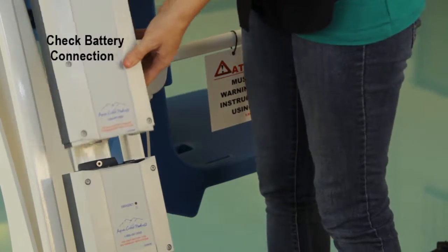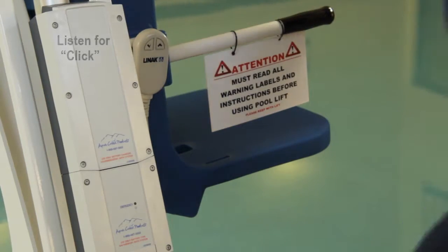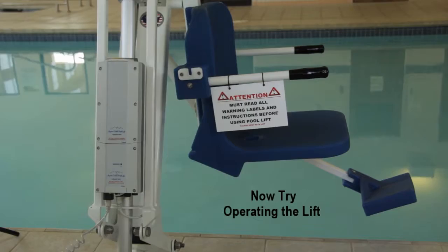Also, make sure your battery is properly connected to your lift. The battery will click into place when it is properly connected to the control box. Now try operating your lift.